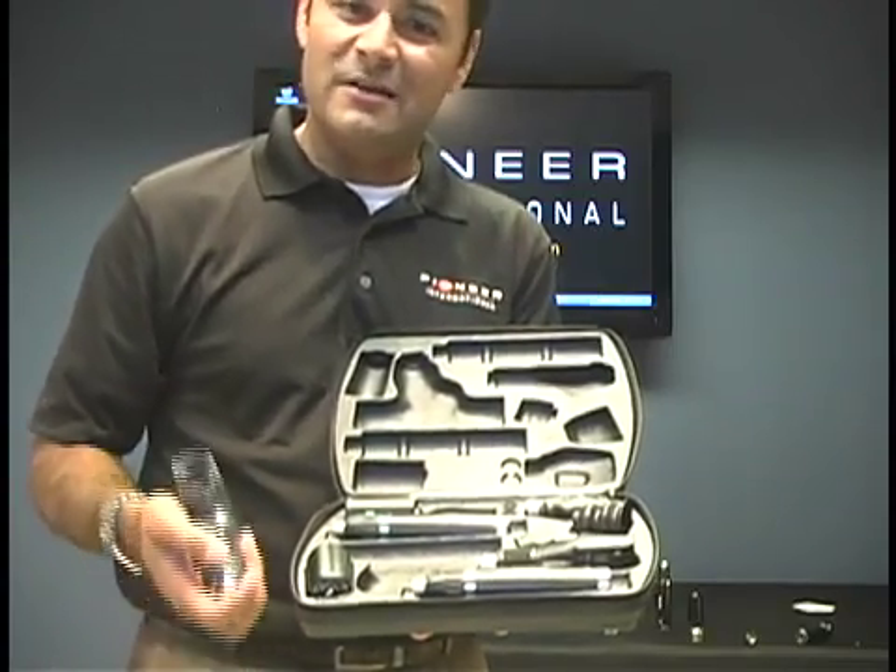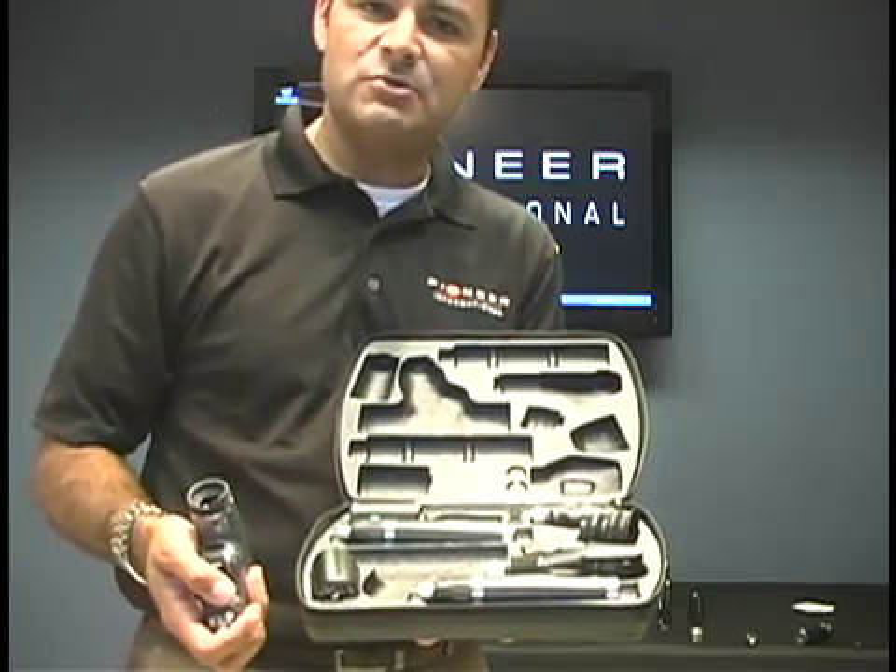The main thing is you need to have two handles. The other main thing is you want to make sure it's got a nice hard case so it's secure.